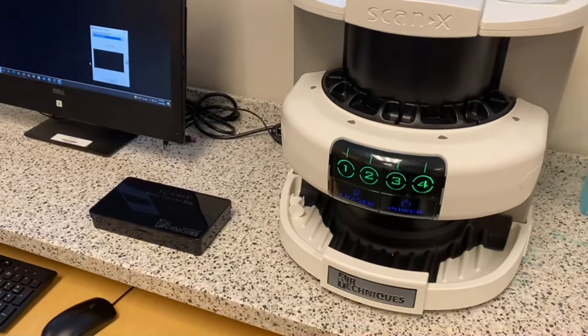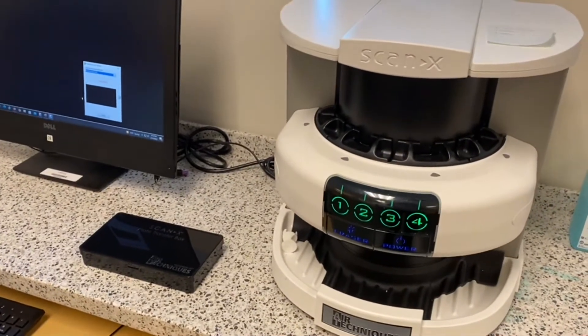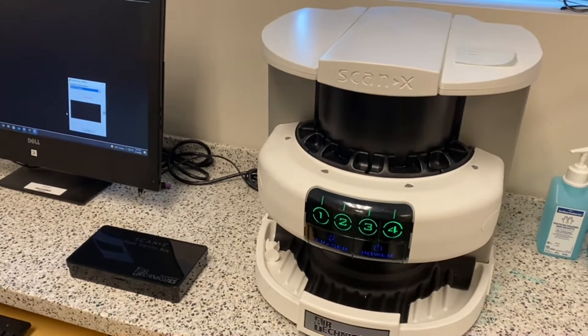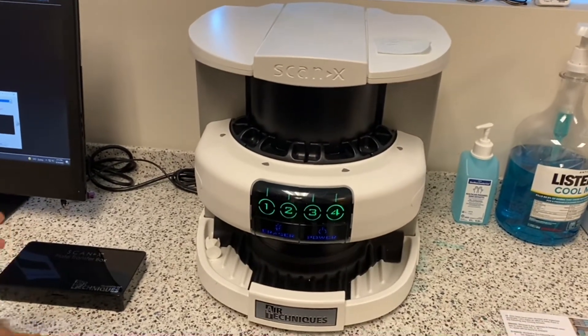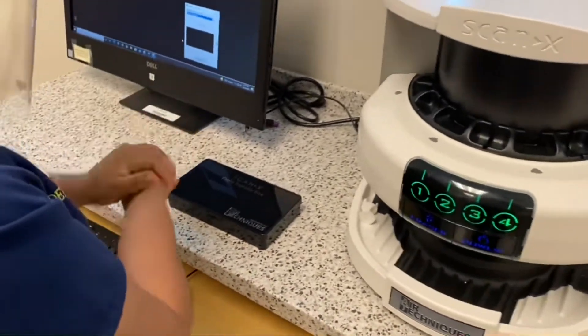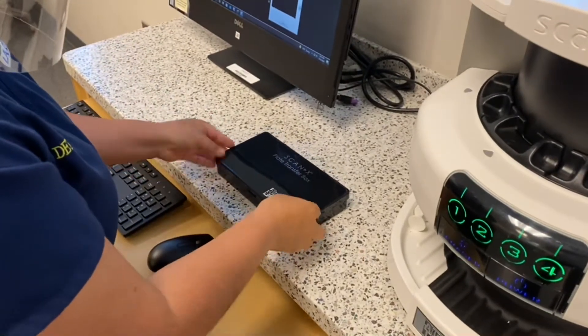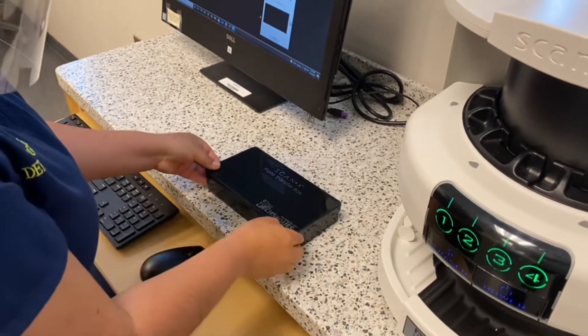The four lights will be turned on green, just as so, once the machine is ready for the development of the images. We want to sanitize our hands, make sure we have clean hands.